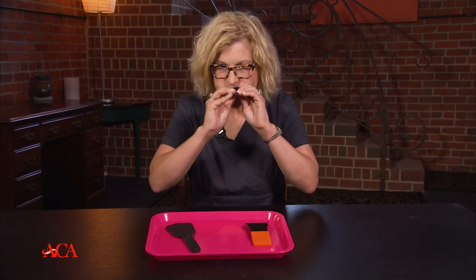If I were to put this in the patient's mouth, I would hold on to the rubber piece and the patient could even do this themselves, so if the assistant is taking the photo or the doctor is working alone, you don't need another set of hands — the patient really is your assistant. I'm going to place this in my mouth to show you what it does. It also goes on the upper arch, so if a patient is laying back in the chair they can place it in and really hold it, helping to get the lips off the teeth. It's very comfortable for the patient.